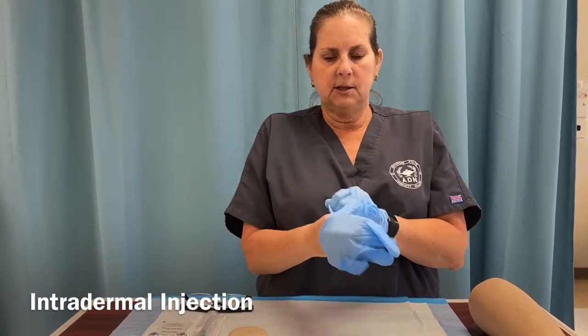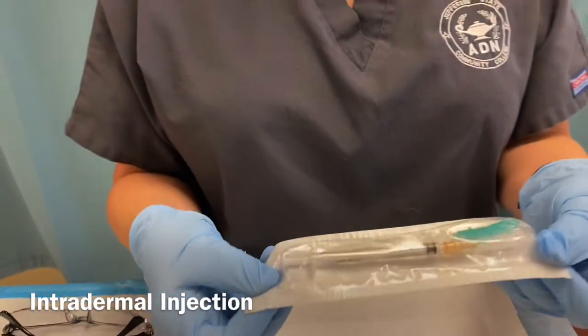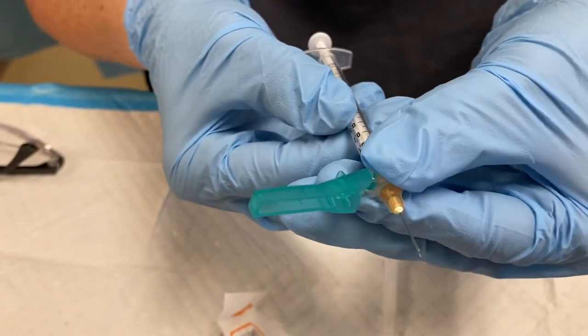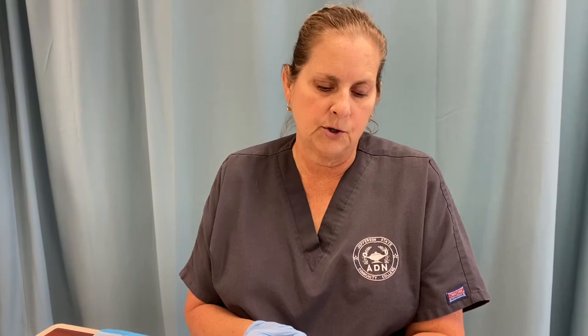With your intradermal injections, you will be using a tuberculin syringe. Tuberculin syringes are typically from 0.1 milliliter up to 1 milliliter. Needle gauges range typically anywhere from 14 gauge up to 31 gauge. The higher the number of the gauge, the smaller the bevel or the opening of the needle. So a 14 gauge needle will actually have a larger opening. 14 and 16 gauge needles are typically the ones they use to insert into a vein when someone's giving blood.